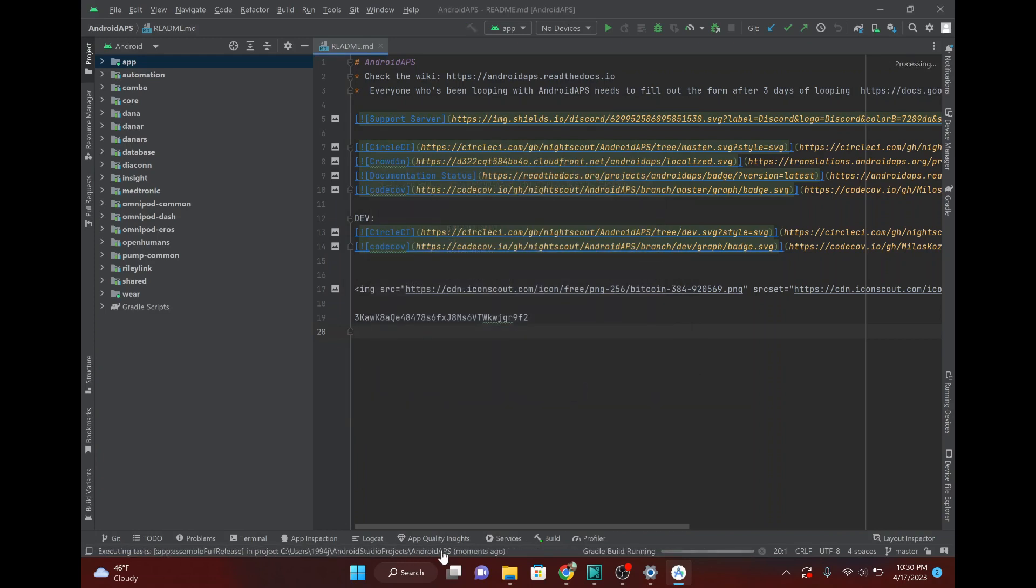And it's running. And this will take some time. On my computer, it takes a half hour, depending on your processor and graphics card. It may take longer. It may be shorter. But it usually takes my computer about a half hour. So, you're totally good to let this just run in the background and work on other stuff. Yeah. We'll check back in once it's done.